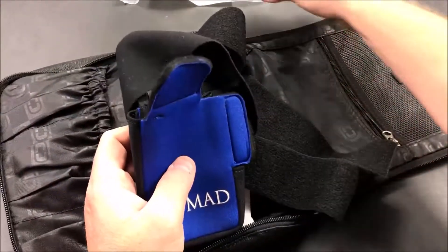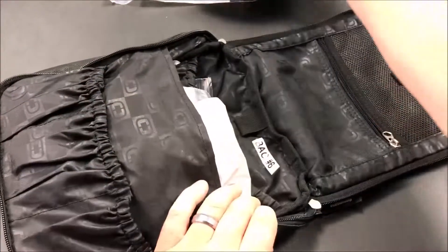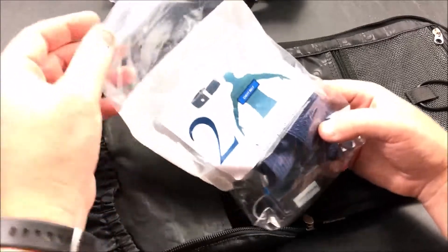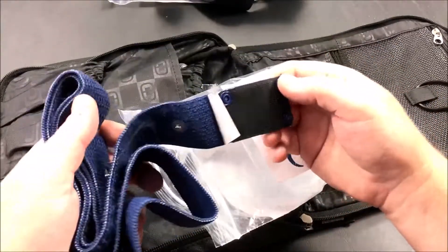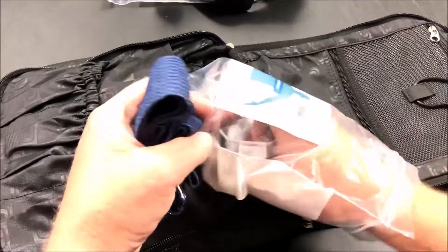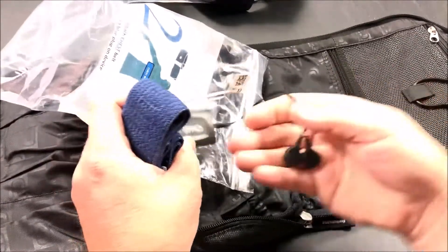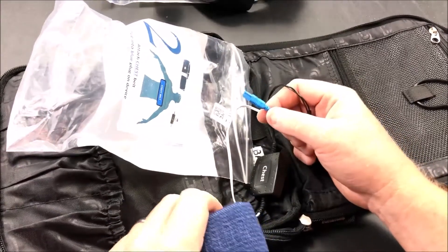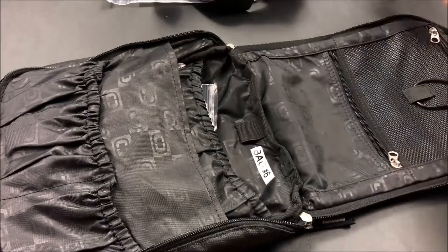This device, when it goes in its bag, is supposed to fit around your chest area, slightly below the chest line, because we have other straps I'll show you here. So bag number two is the chest strap. It goes a little higher than your device. It's pretty simple — it's got velcro on it and a couple of snaps where you snap the sensor. This color-coded blue connector goes into the blue color-coded piece on the controller. That's the chest monitor.